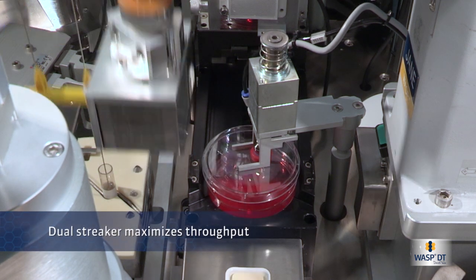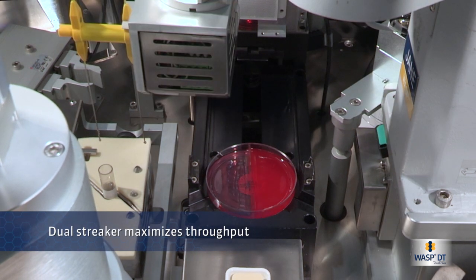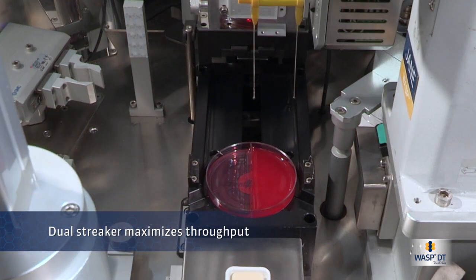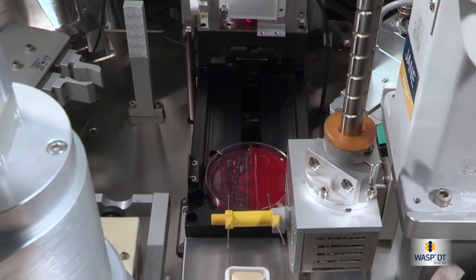The WASP has an optional dual streaker, which can plant and streak both sides of a bi-plate at once, maximizing throughput.